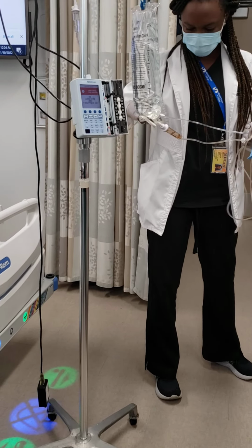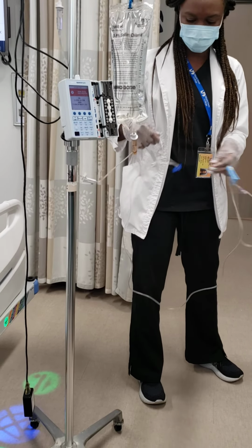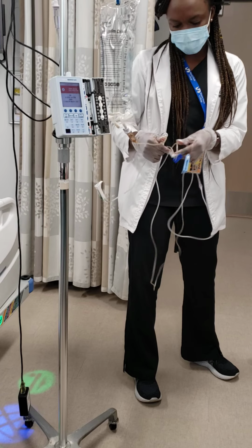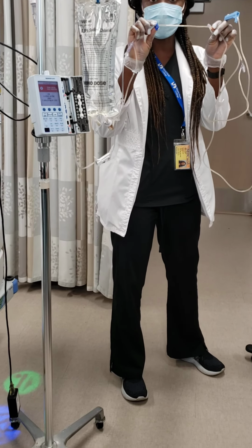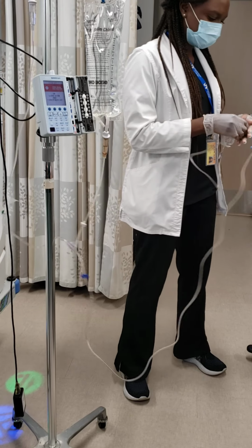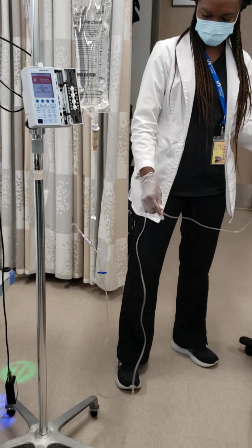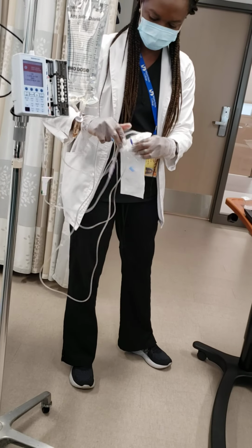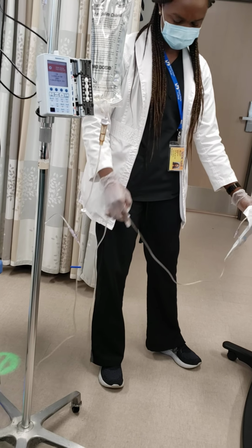What I'm going to do is clamp the secondary. I don't want to waste the secondary. The primary is normally saline. That one I prefer to waste than anything else. You see this large air bubble. I don't know how it happened, but it happened, right? So what we're going to do, we still have to go ahead and prime it. And you have to unclamp it, okay? And that's it. And you'll see now the primary is going to go.